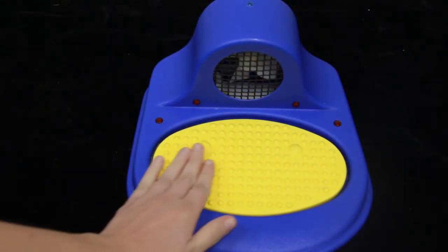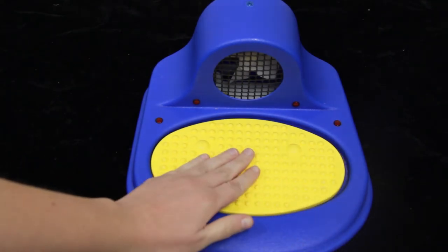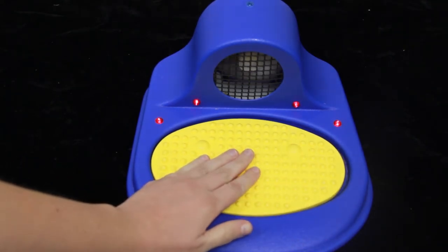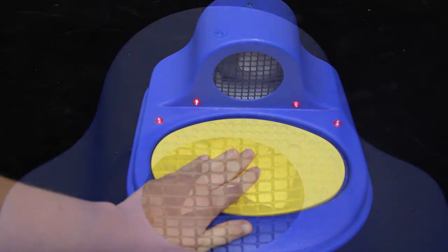Then, by holding down the textured oval plate, individuals will feel, hear, and see the fan turn on with lights and music.